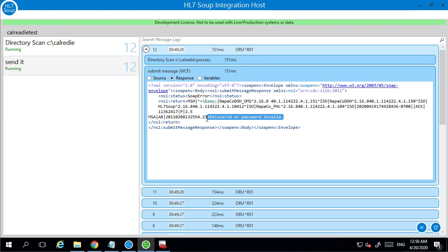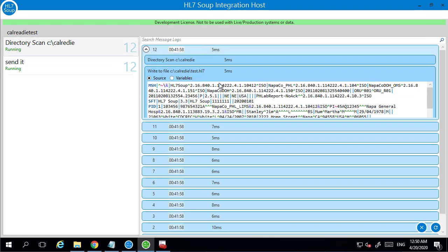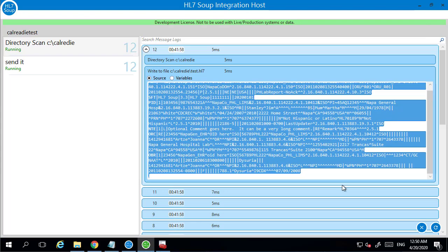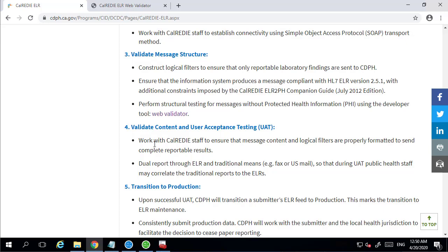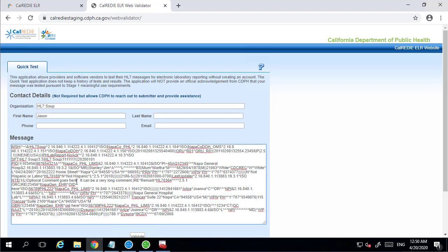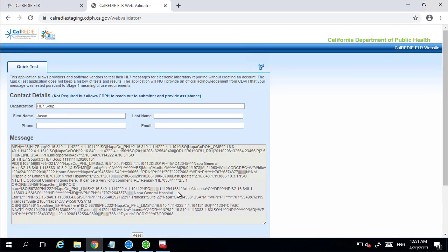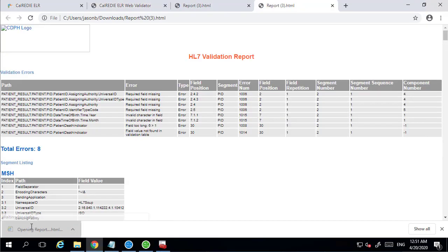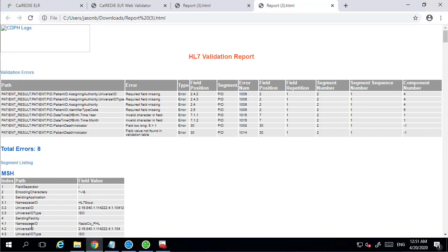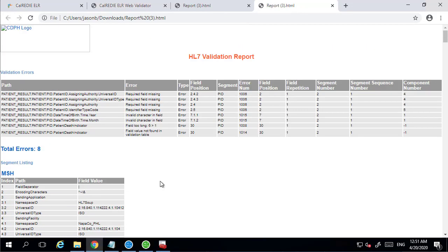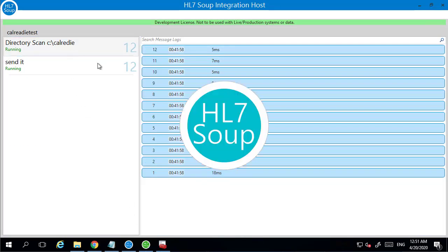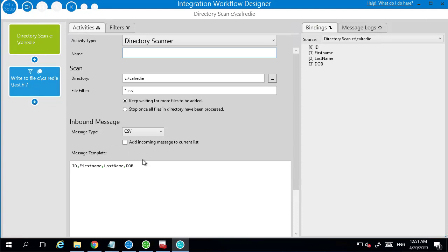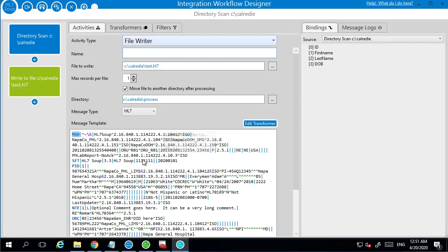Which is they have a lot of fields inside their HL7 message that are required to be provided. So you've got to make sure that that message that this workflow is sending out has a decent message structure. So what you can do is I'm just going to take one of my messages. And they have a validator tool. This is on their website. You can fill out your details, paste in your message, hit validate. And once that comes back, we can hit download results, open up the report, and their validation tool will tell us what fields failed. So there was a few fields I didn't have that were required or missing, valid characters for them. They actually give you a pretty good detailed report. So each of those are going to have to be corrected inside of here. And we would have to provide either a mapping of a transformer or a literal value into the right location.